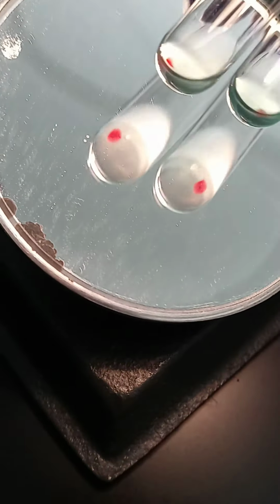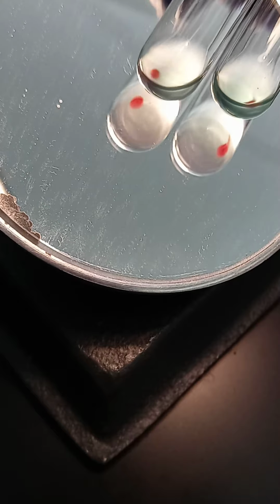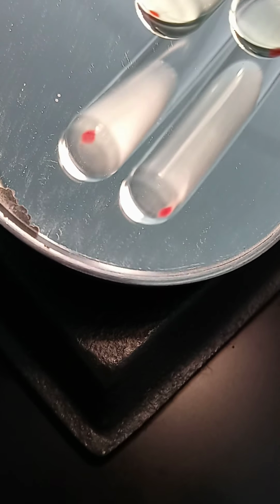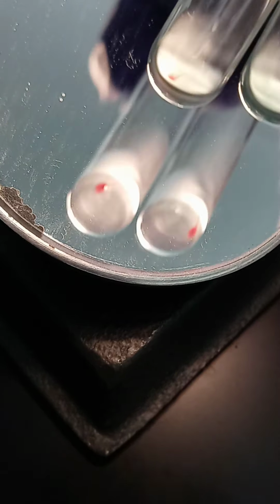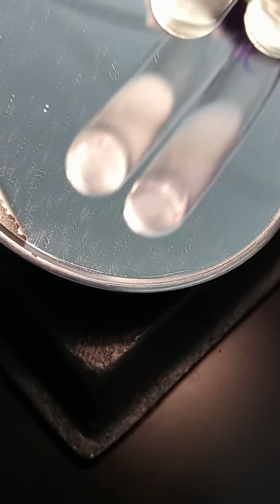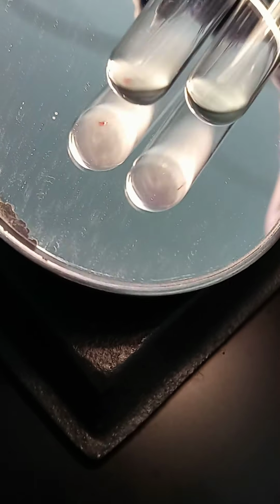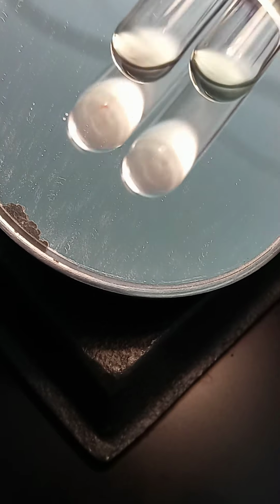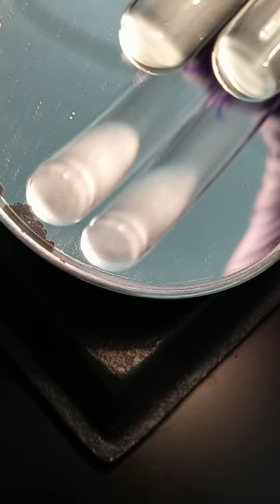See what it looks like in the agglutination viewer. And when you're looking in the agglutination viewer, again, you're looking in the mirror, not at the tube. Okay. So now you're going to go tell me what your D and D control reactions are at the AHG phase, AHG or IAT phase.